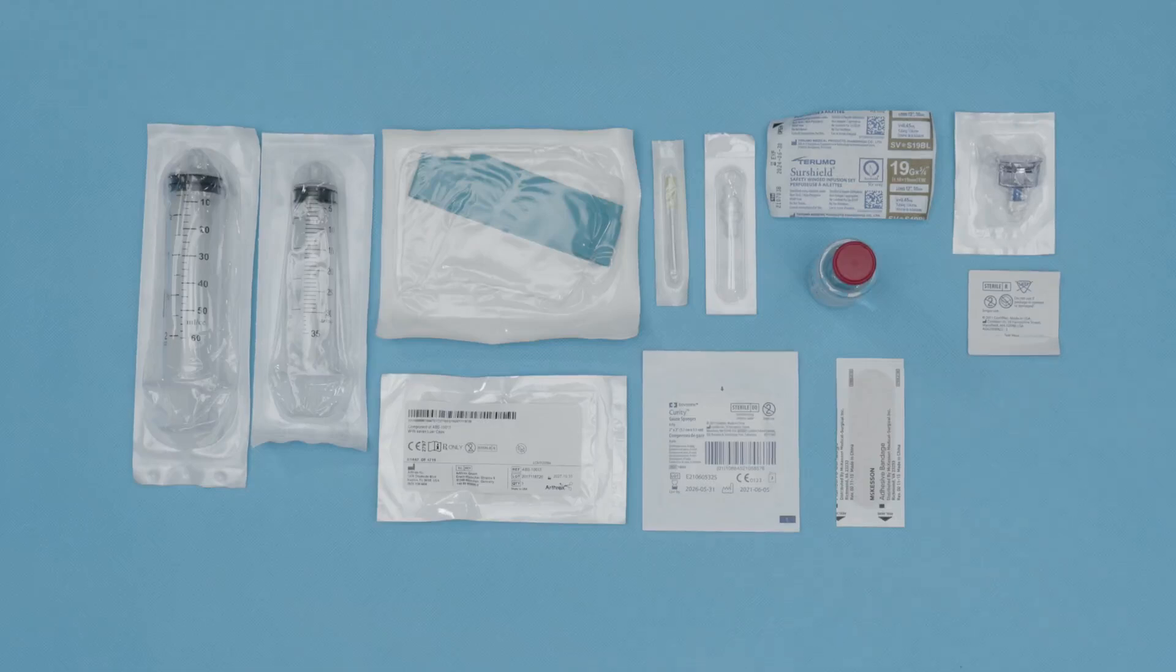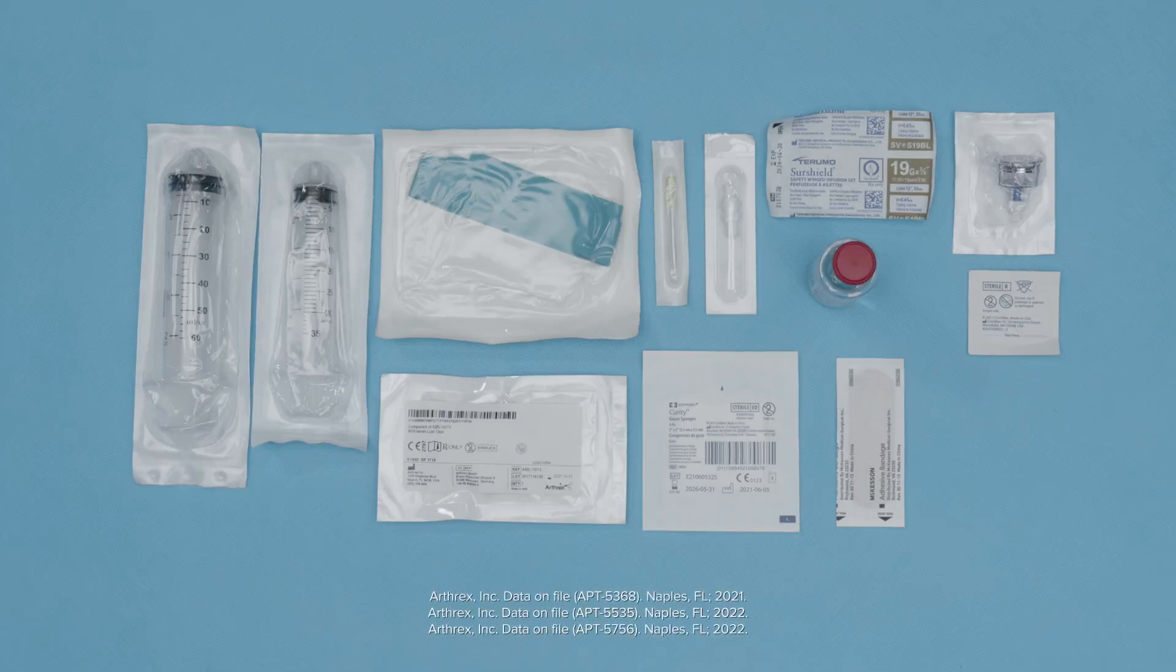Today, we're going to review the Arthrex ACP Max device. The ACP Max device will provide a high concentration of platelets with a low concentration of neutrophils.